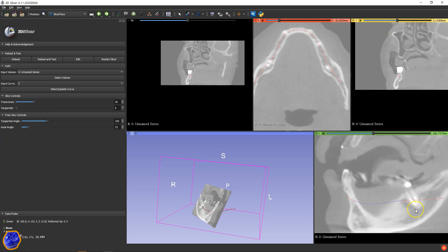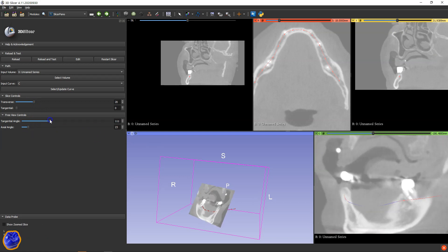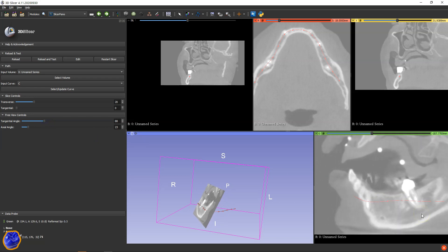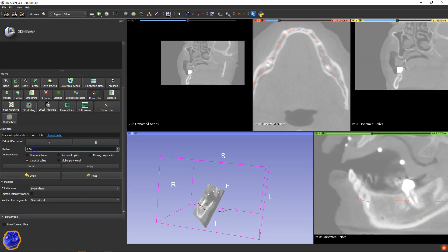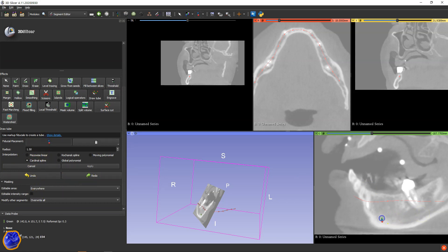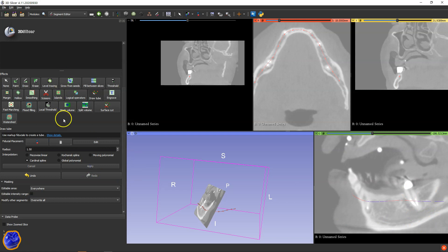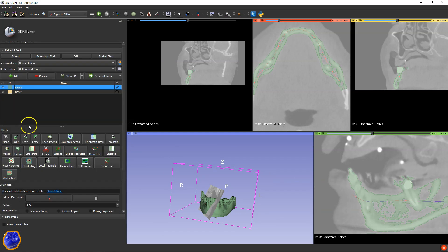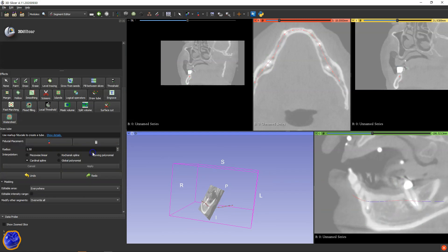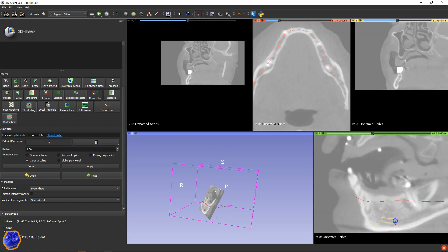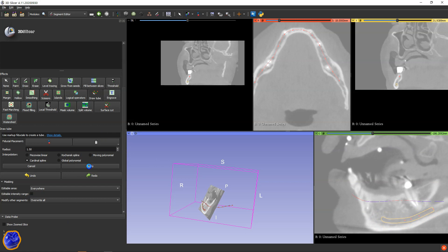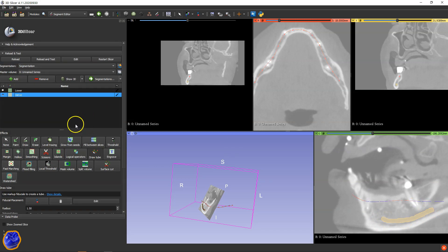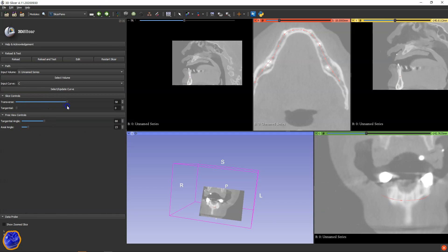Once you've got a good visualization, we're going to head over to the segment editor and then click on the tube. Put down 1.5 more or less. And then we're going to draw this tube. Then right-click to get out of it. Make sure that the new segment is selected. Apply that. So we're going to do the same thing for the other side as well.